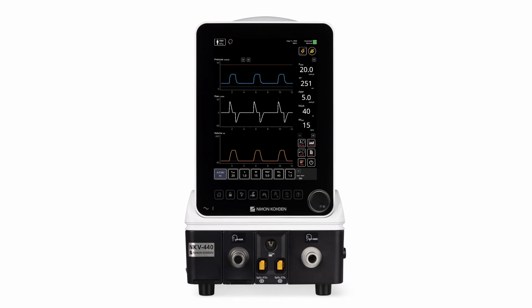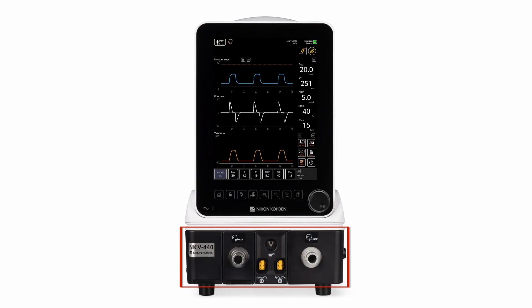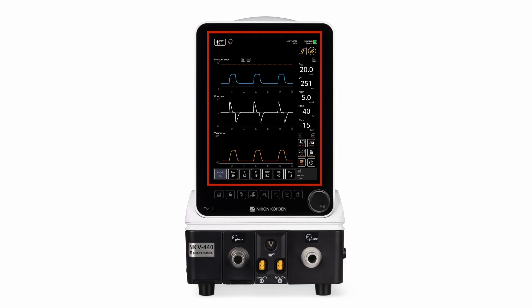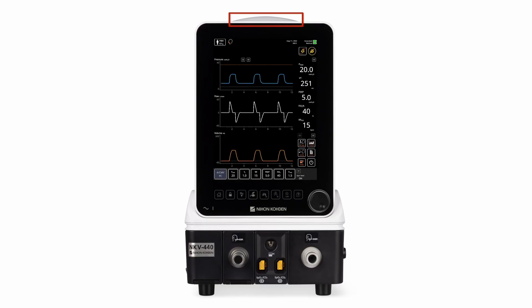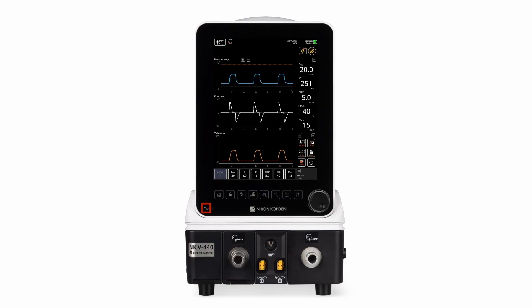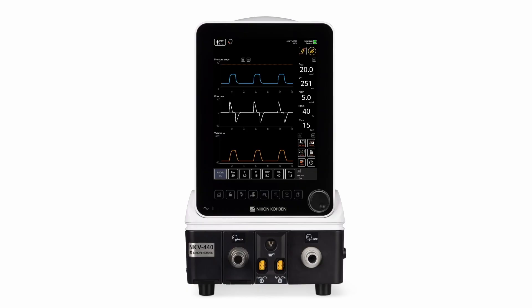The main system is comprised of two components: the graphic user interface and the breath delivery unit. On the top of the ventilator is the 12.1 inch graphical user interface, referred to as the GUI. Clinicians interact with the GUI both through the touch interface and the encoder knob. A large alarm indicator provides 360 degree visibility. Below the GUI are LEDs that indicate power on/off, AC power connected, and battery charging status. The GUI is tiltable for ease in viewing and may be folded down when the ventilator is not in use.